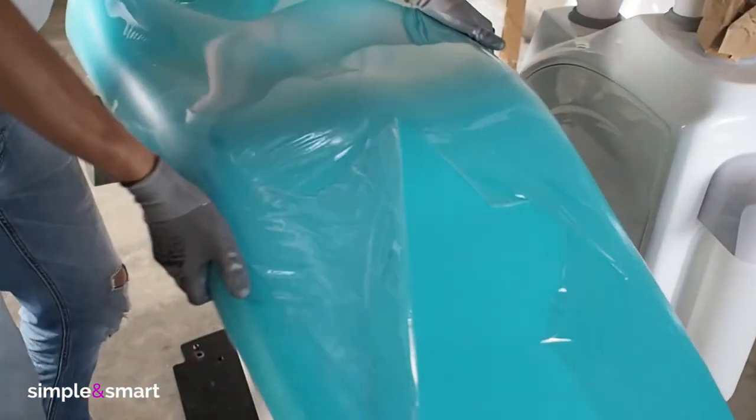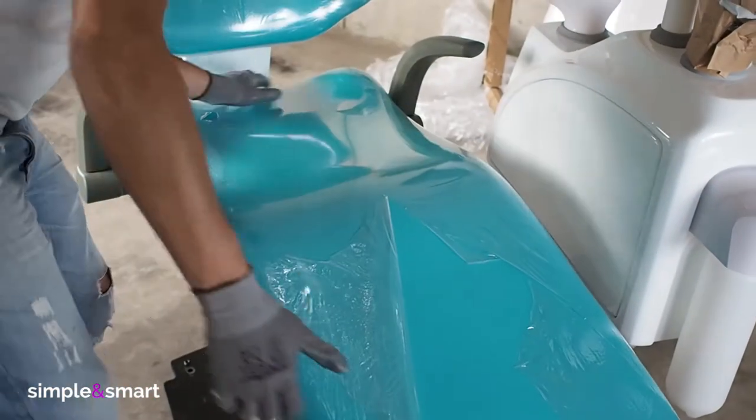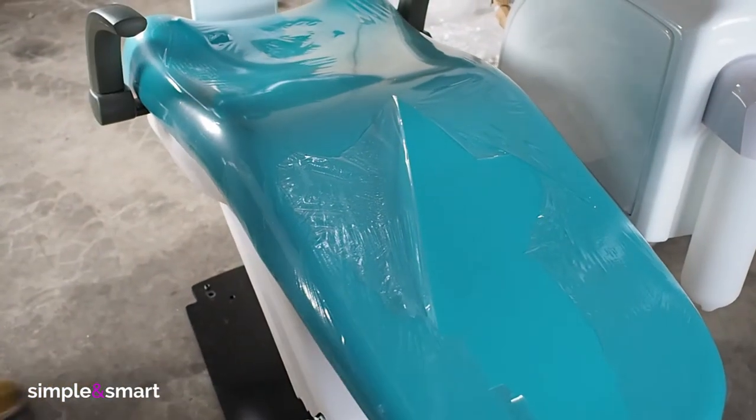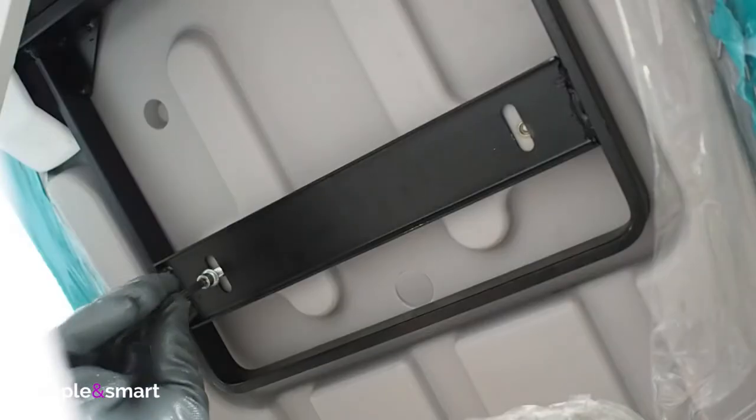Place the seat of the chair and push it back a little to fix it correctly. Then lock with two small screws in the front.